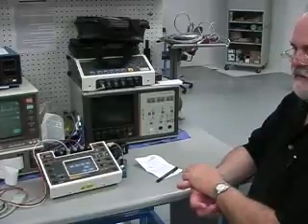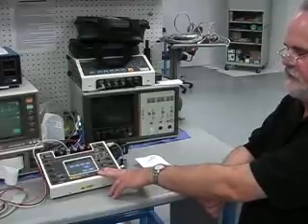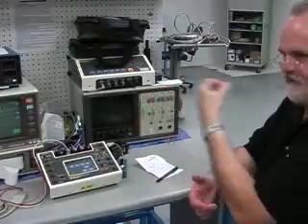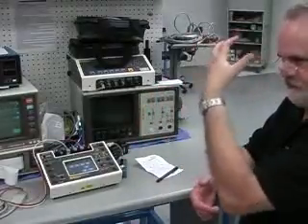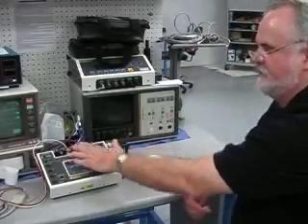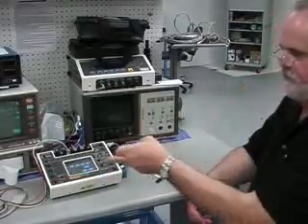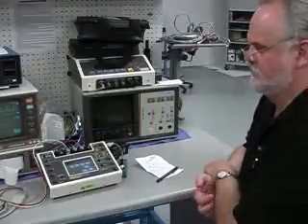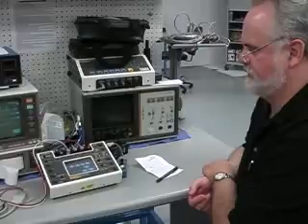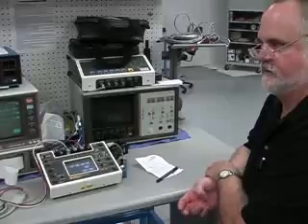This can also be used for testing the different fetal monitors from the direct mode, after the mother's water is broken and they have access to the crowning fetal head. You can simulate the fetal ECG off of this, and the intrauterine pressure can be simulated with the 4th BP channel. Again, that's in the manual. All of those special option functions are well described in the manual, graphically too.